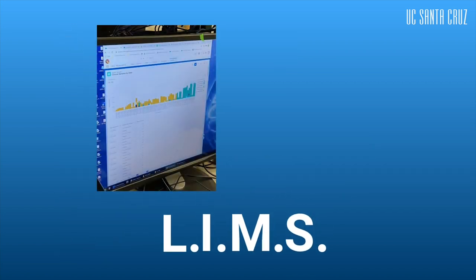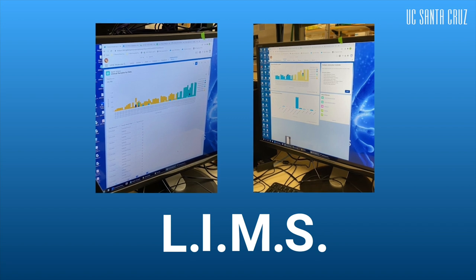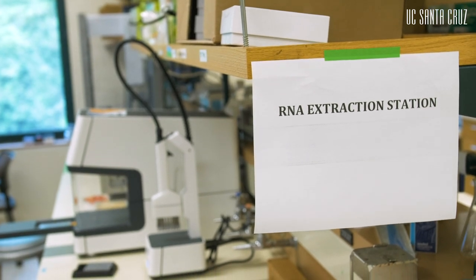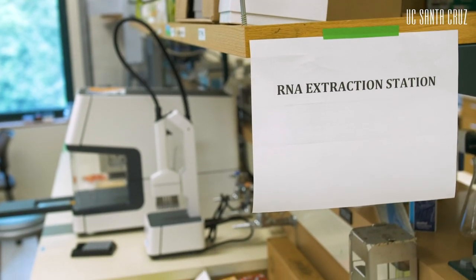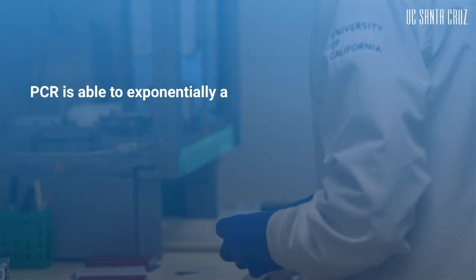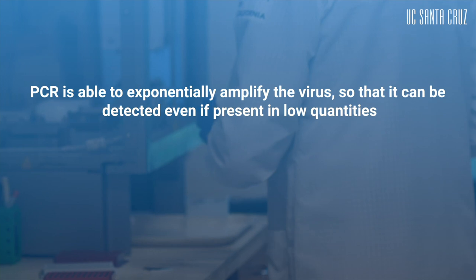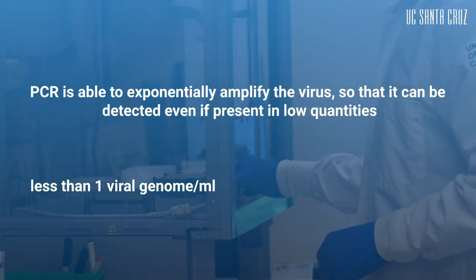The scanner automatically registers and uploads their data into our Laboratory Information Management System, also known as the LIMS. The LIMS tracks all samples scanned, checking for personal health information to be sure it matches. Because of this automation, we have been able to scale up in order to process many patient samples all at once. Once samples are registered, we can begin our automated workflow to extract the sample's RNA material. This is when we begin the process of the qPCR assay. PCR is able to exponentially amplify the virus so that it can be detected even if present in low quantities.